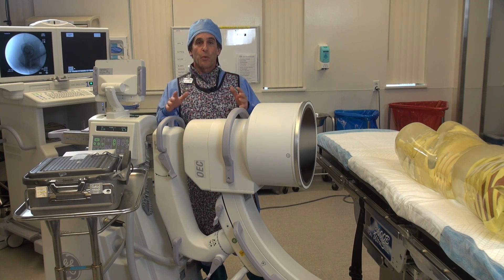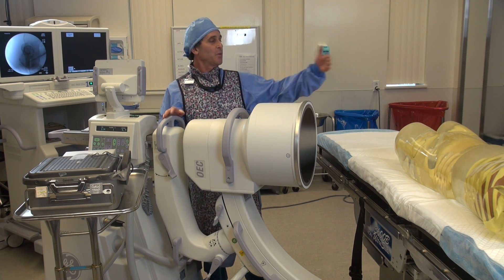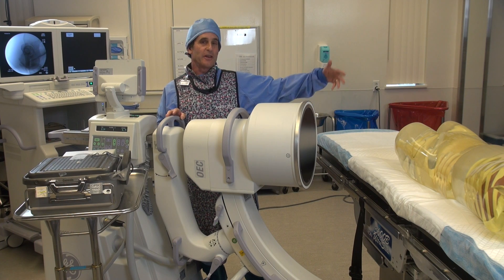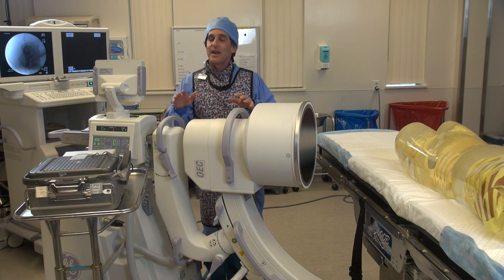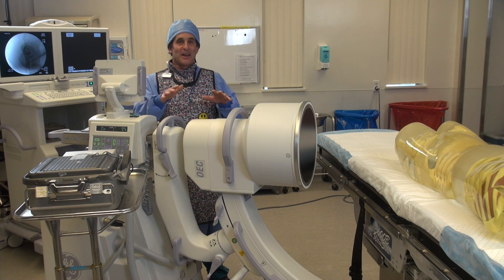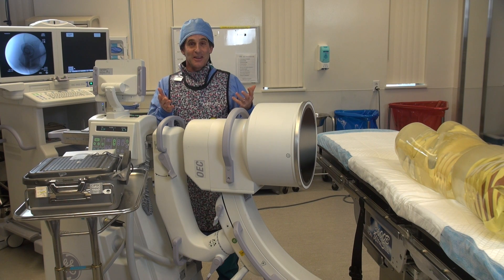We're going to make two exposures. We're going to do one on the side over here where the tech would be, and we're going to do one on the side where the surgeon, the assistant, and the nurses would be.